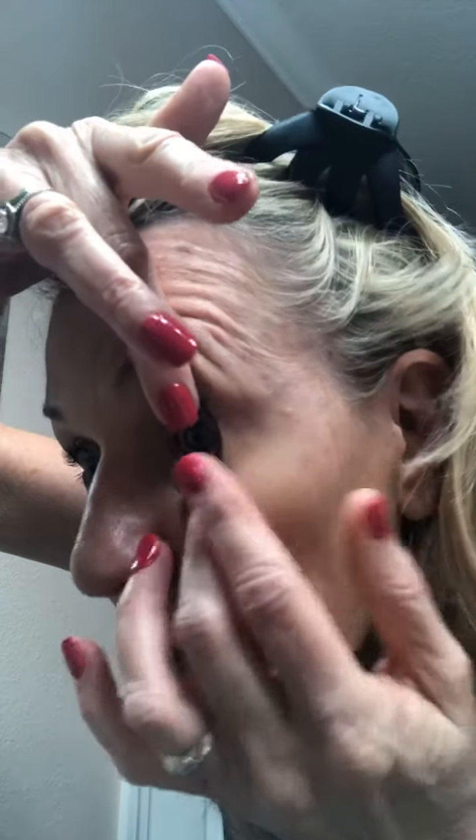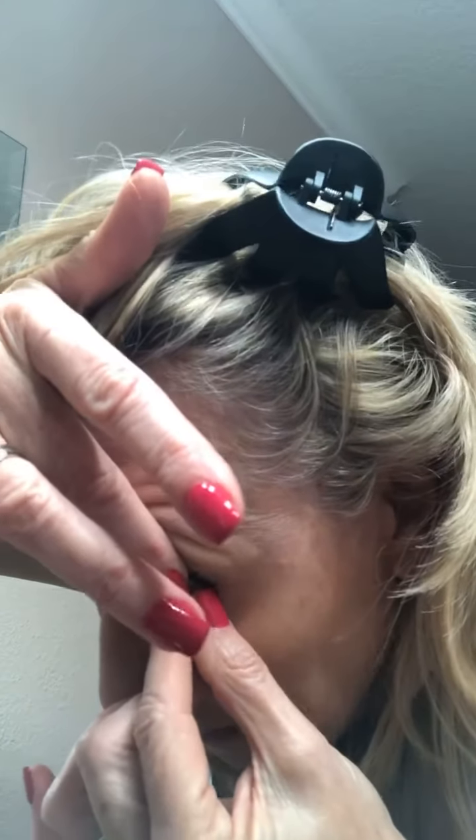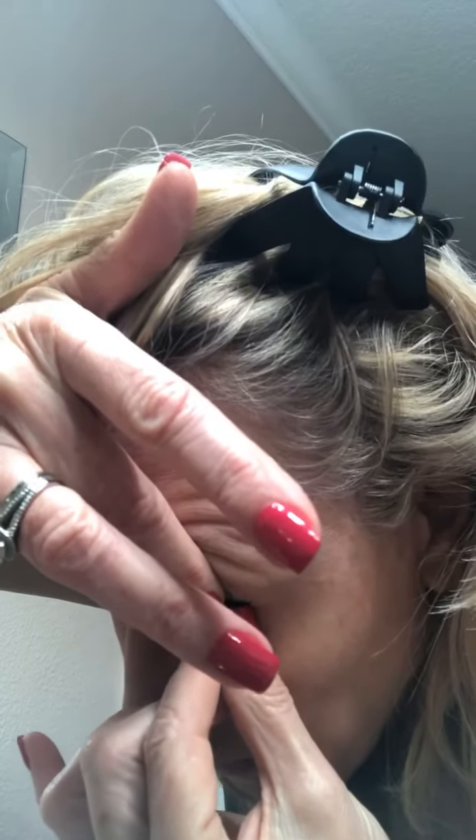Okay, that'll help. All right, this is creepy. I do have a friend on backup in case I can't get this out. She said... oh my gosh — first try! Woohoo! I don't know if you can see that — they're like super paper thin. So the way I did it was the way my sister Mary Jean told me: lean your chin down and do it that way. I'm really really excited — that was the first one!